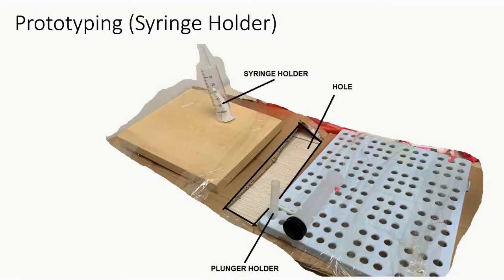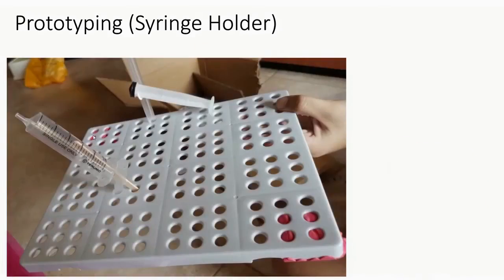These two are then placed together in a prototype where it simulates the base as shown earlier. However, because of this, the dimensions are too big for the camera to pick up. Thus, a next prototype is designed where the syringe and the plunger are put together in the same board where it allows the camera to do some testing on it as it is within the area of vision.